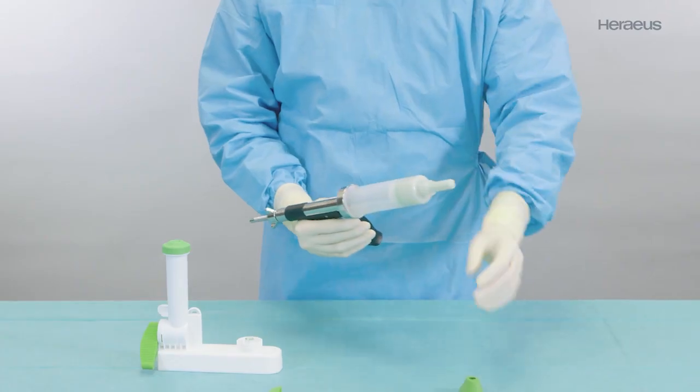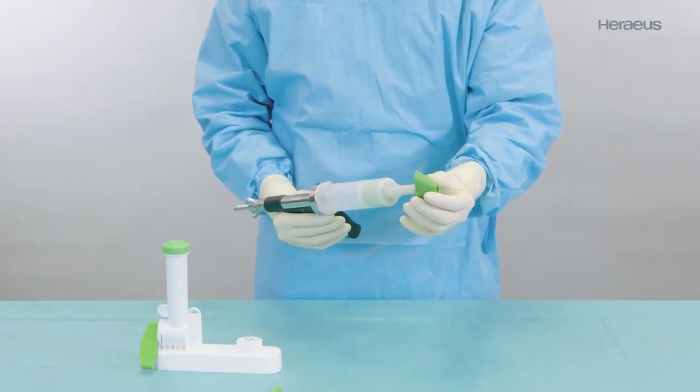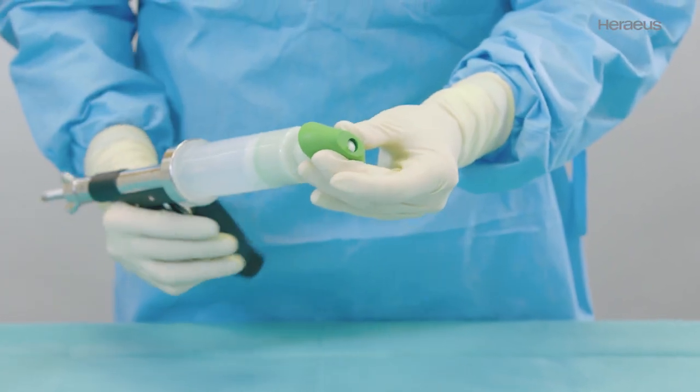If performing a hip arthroplasty, you have the option of attaching a femoral pressurizer to the short nozzle.